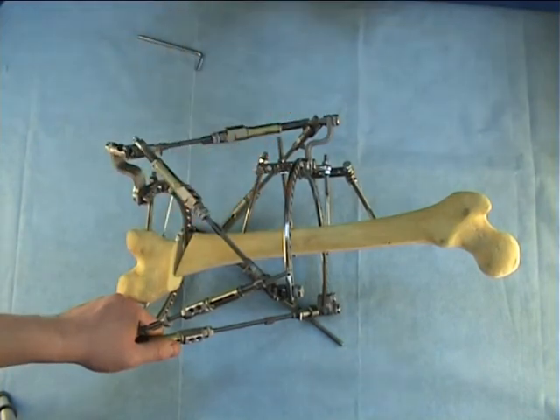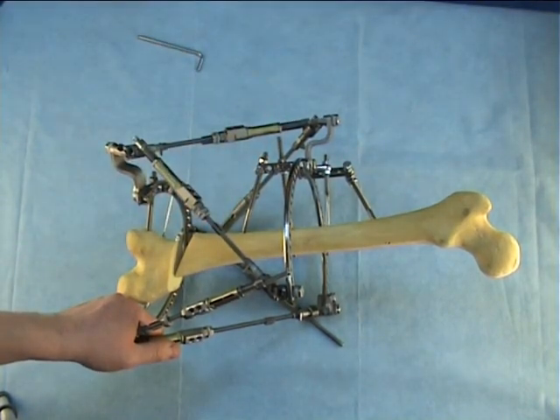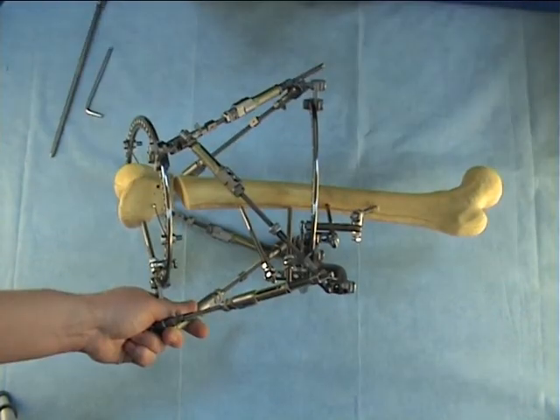You see, we turn the yellow body and the yellow cylinder, and the strut shortens. Now we have to tighten the lock nuts.